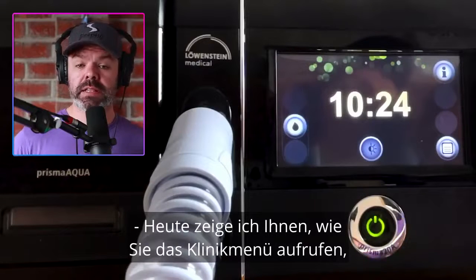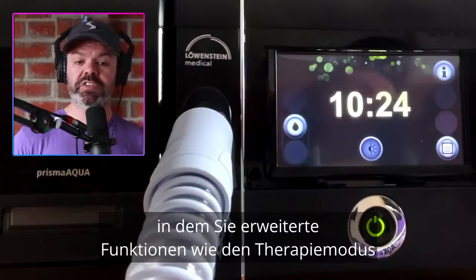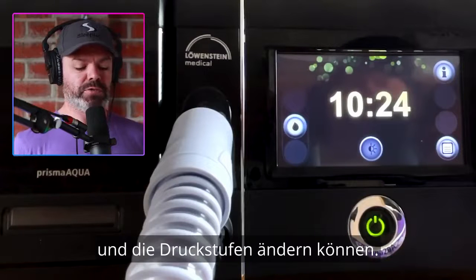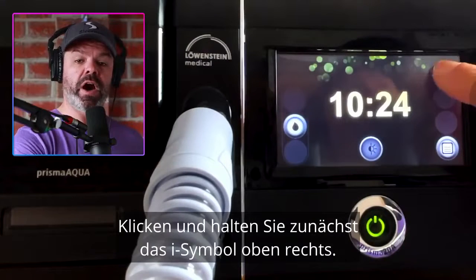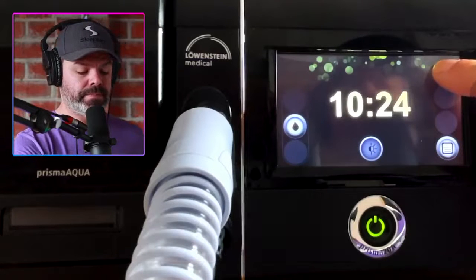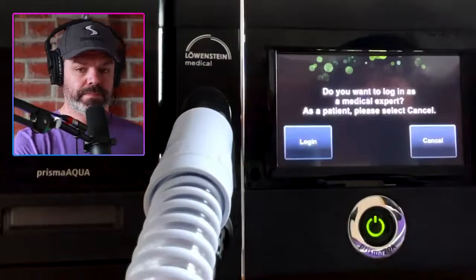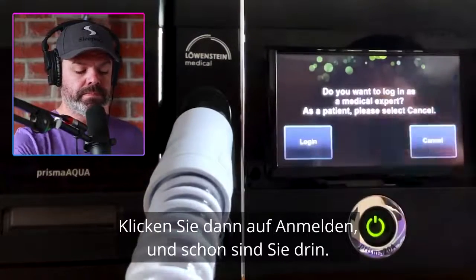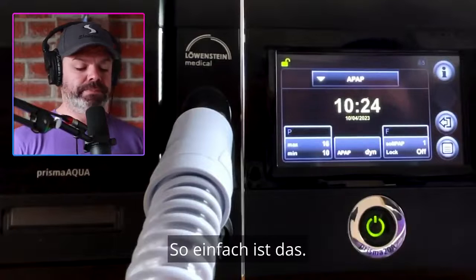Today I'll show you how to access the clinical menu where you can change advanced features like the therapy mode and pressure levels. To begin, click and hold the eye icon in the top right. Then click login and we're in. It's as easy as that.